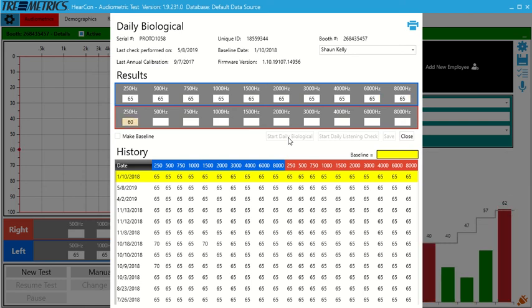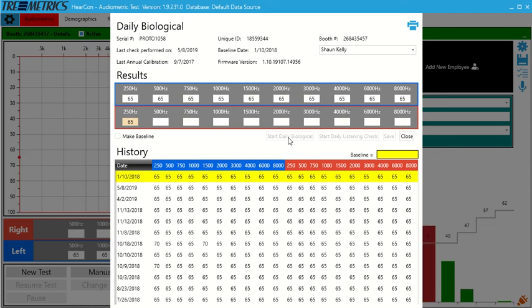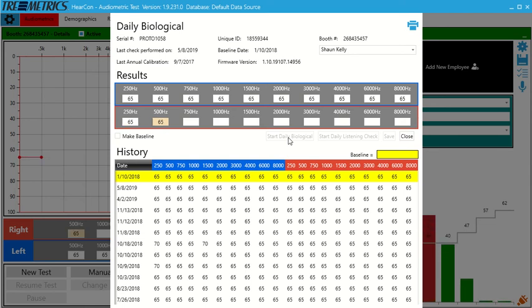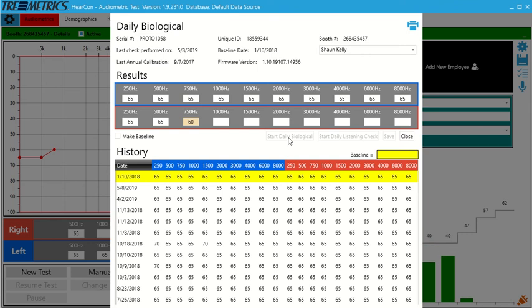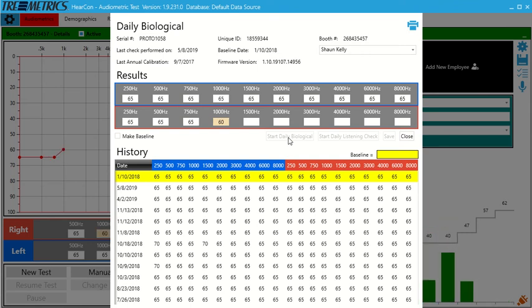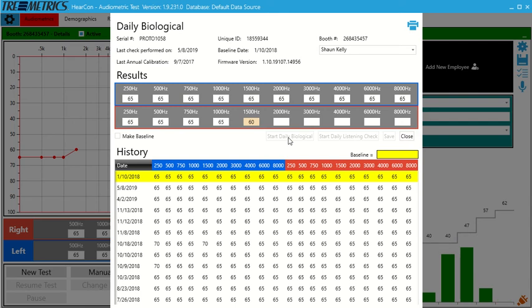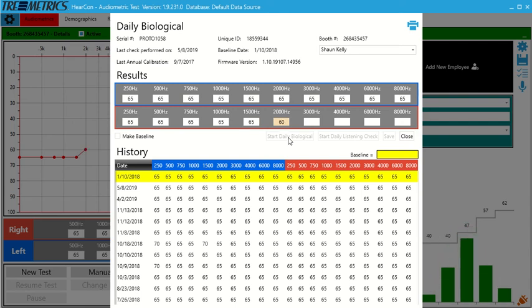Now, the listening check is also built into the device. The listening check is actually conducted on the touchscreen of the audiometer, so we're not going to go over that. But instructions pop up on the screen. It'll walk the user through everything they have to do. And then at the end, there's a checkmark. You can hit the checkmark, and it's going to save all that data as well.